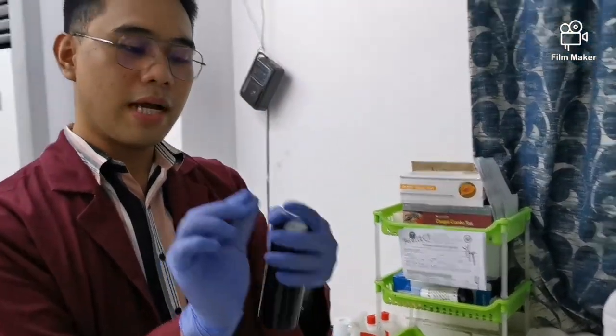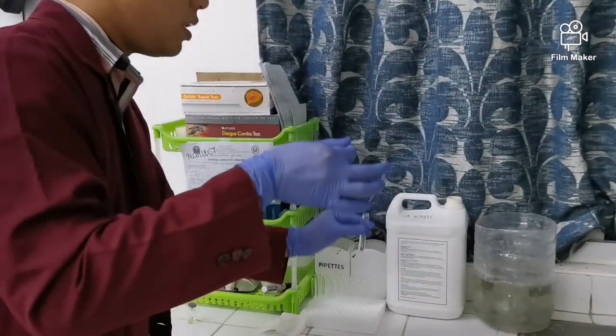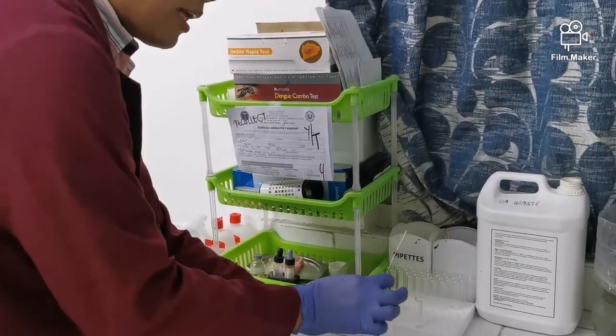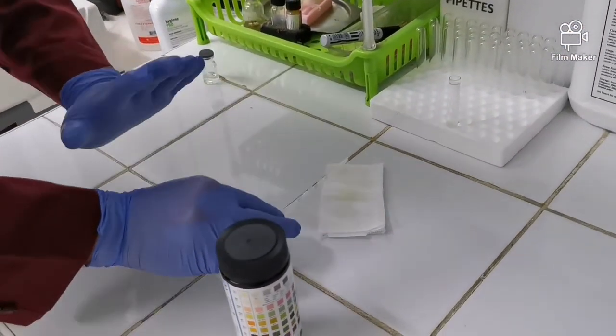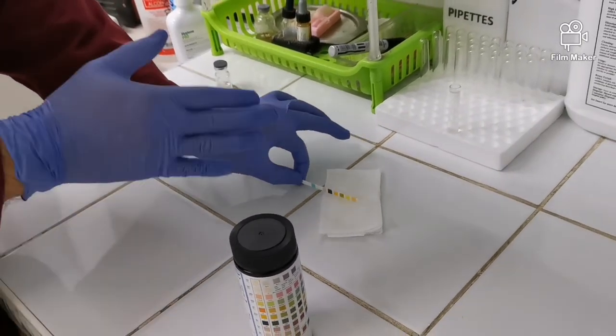So ito yun, yung typical na dipstick natin. So 10. So ayun, ididip mo lang siya dito sa ating urine. And then, we blot. Paano ba mag-blot? So yung side lang ng urinary dipstick, ganun yun. Para mawala lang yung excess na urine. Para hindi naman basang-basa.